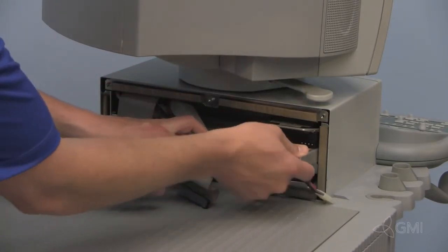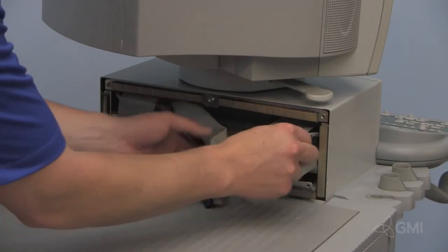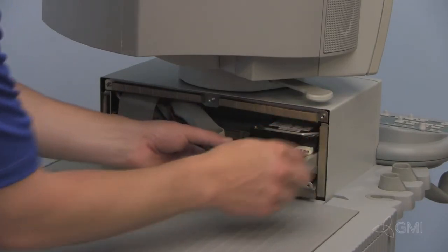Make sure that you check the jumper settings. Reinstall the SCSI and power cable.